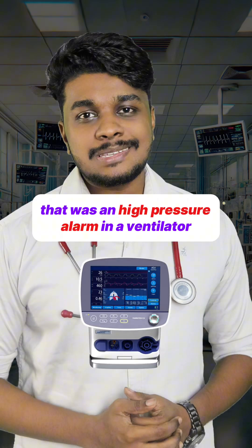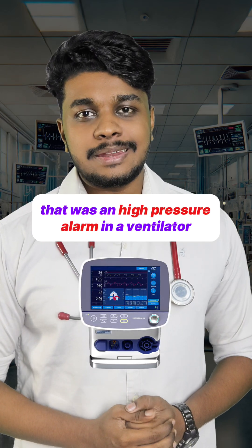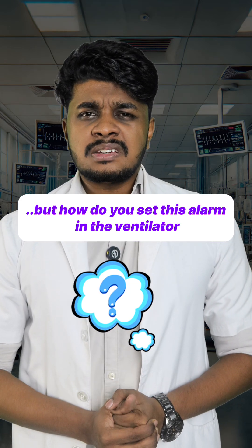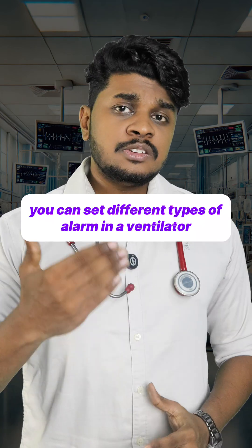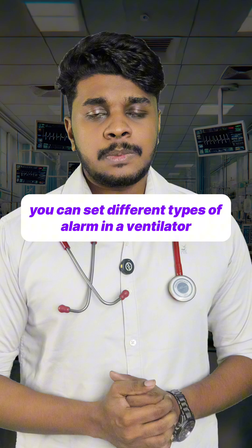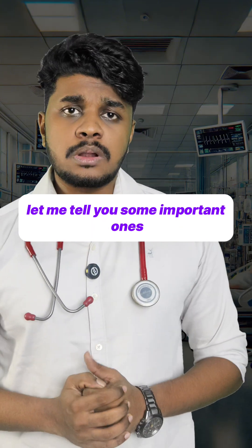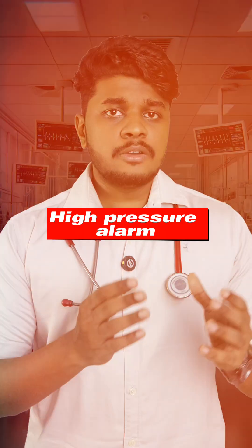What happened, doc? That was a high pressure alarm in a ventilator — now it's sorted out. But how do you set these alarms in the ventilator? You can set different types of alarms in a ventilator. Let me tell you some important ones.